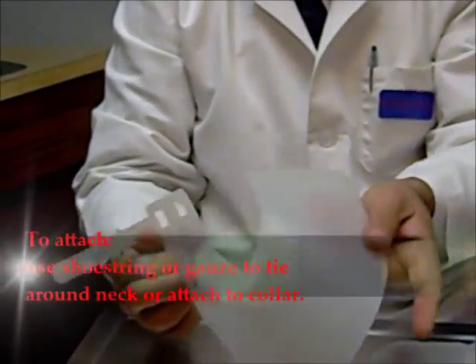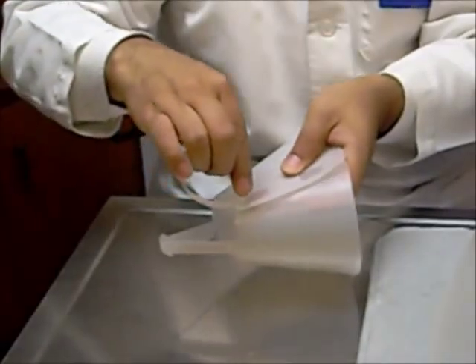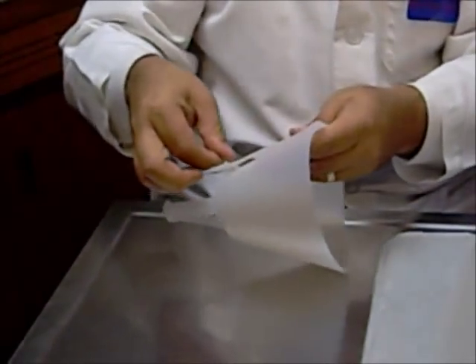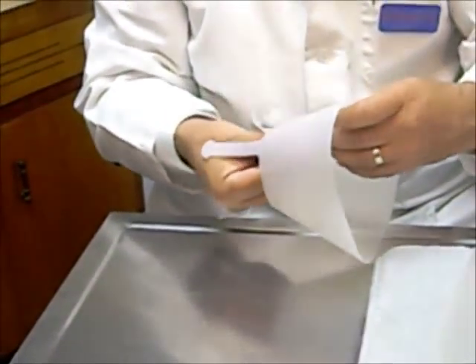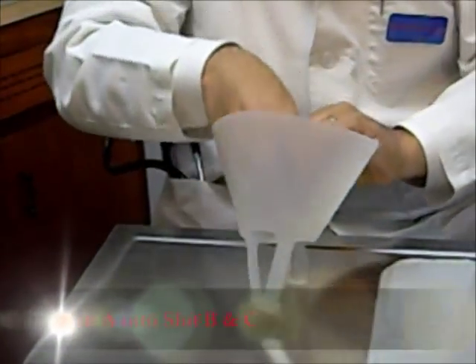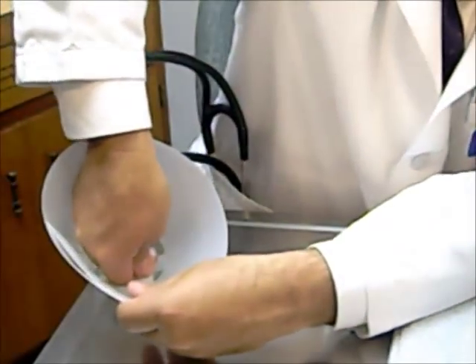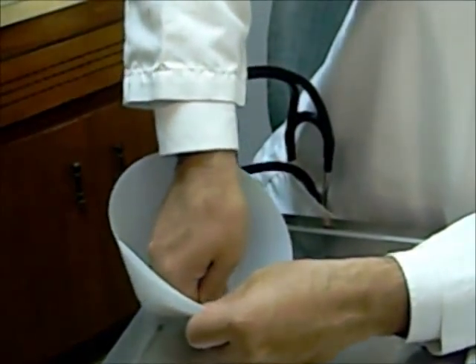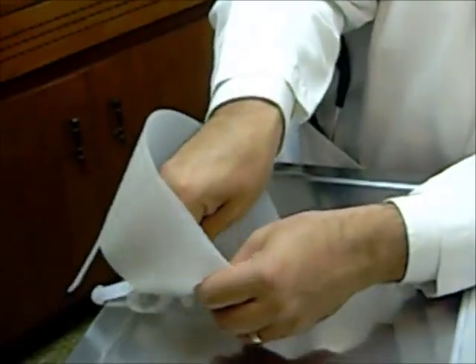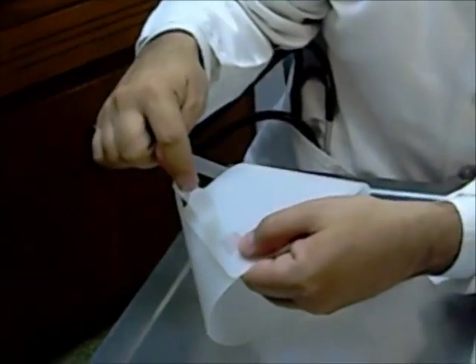So how do we put this together? We've got this slid around. Coming on the outside of the loop, we're pushing down through the opening into that little slot — tab A into slot B. On the underside, we're taking tab A into slot C. This one hasn't been done yet, so I'll just use my fingernail to pop that plastic a little bit. Now it slides right through — you can see it come out. We just pull it tight. So that was slot B and C.